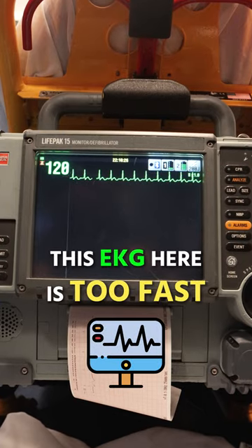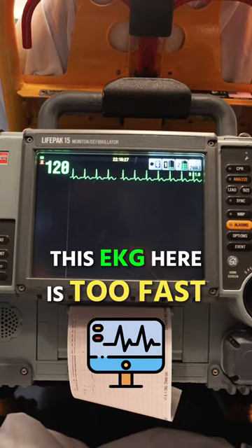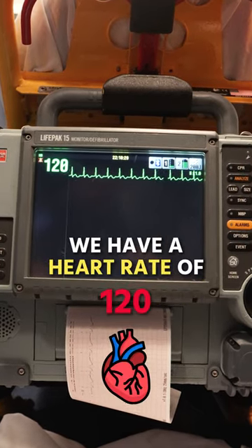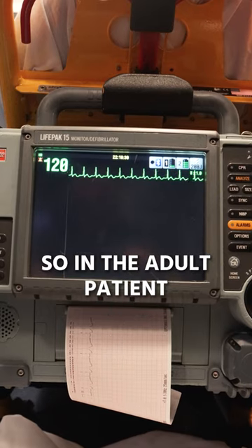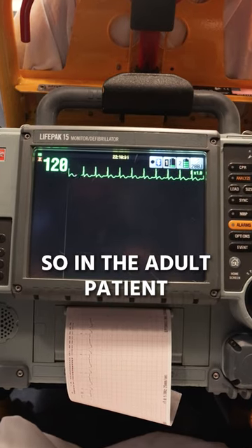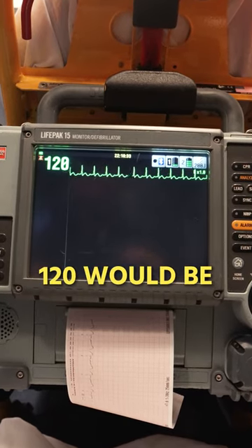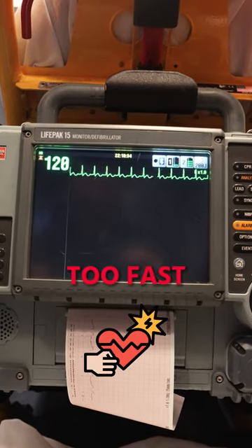This EKG here is too fast. We have a heart rate of 120. So in the adult patient, 120 would be too fast.